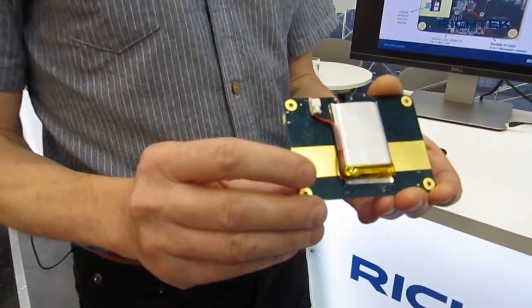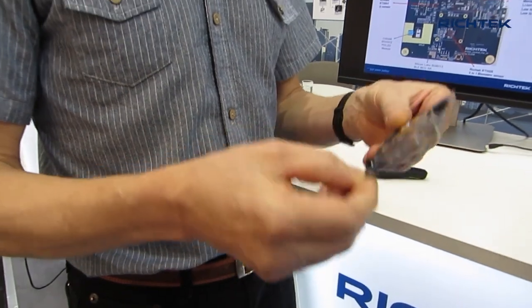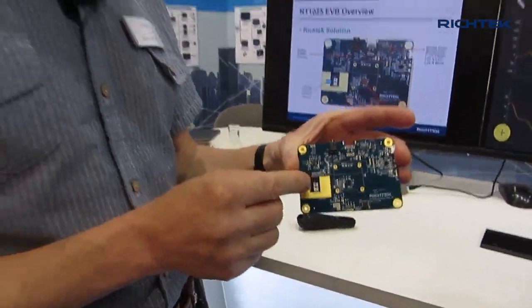The sensor has two electrodes and these electrodes can be used to measure your electrical pulse of your heart. The other sensor on this board is a PPG. It's a measurement that uses an LED light that penetrates your skin and measures the reflection from the internal veins in your finger. The blood circulation in your veins is also pulsing, and by measuring the reflection during this pulsing you can also measure your heartbeat.